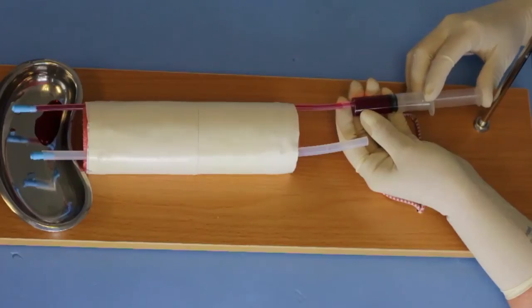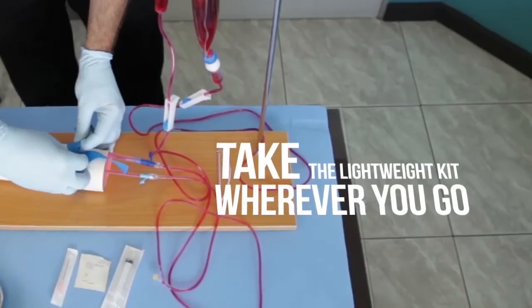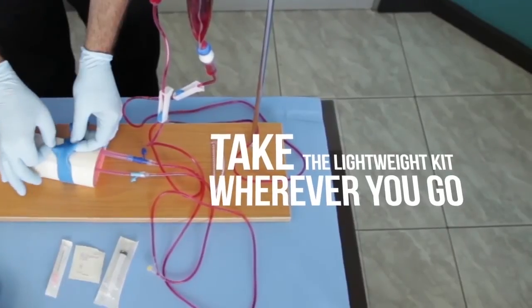A simple, though very effective Venipuncture trainer is included. Professional simulation arms are available for group training. Take the lightweight IV kit with you wherever you go.